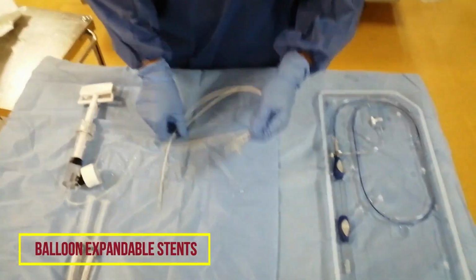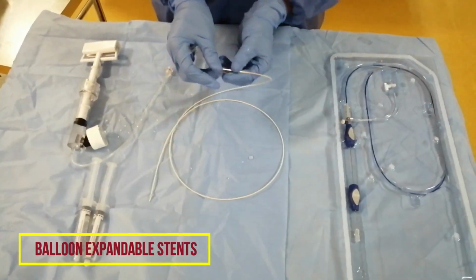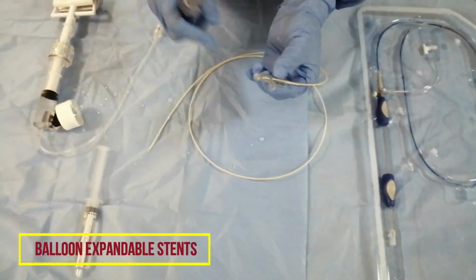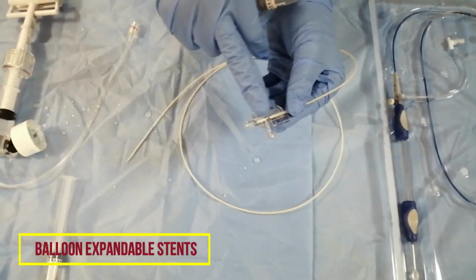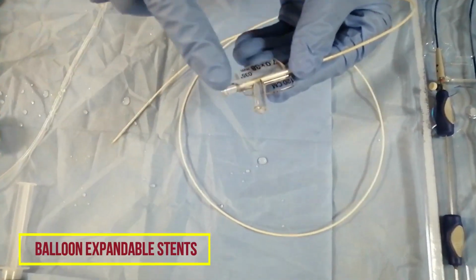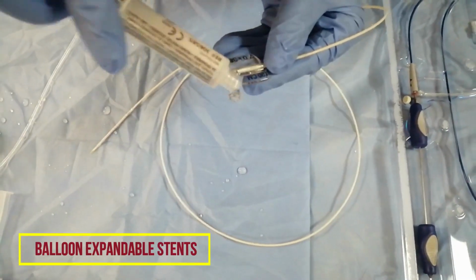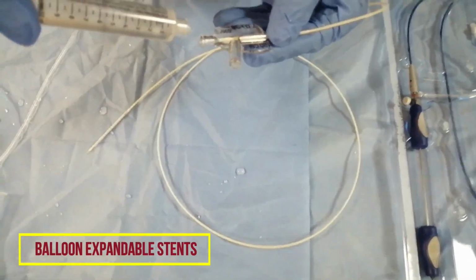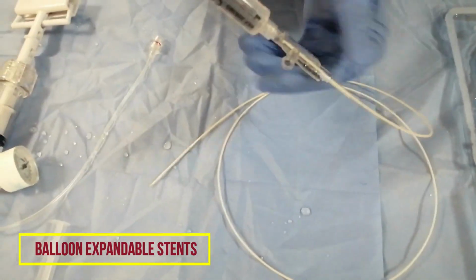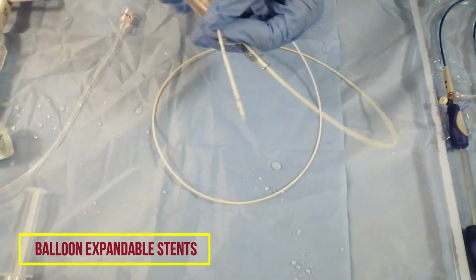If you open a stent, you can see it like this. This is the balloon expandable stent, over the wire. Now I'm going to flush. You have two ports here: one is the straight one, and the other is the side port. The straight one is usually for inserting the wire, and the side one is for the inflation device. We will just flush the straight one. Okay, great, now this is ready.